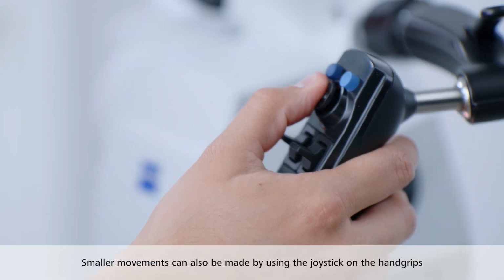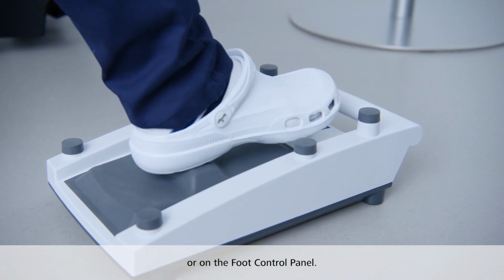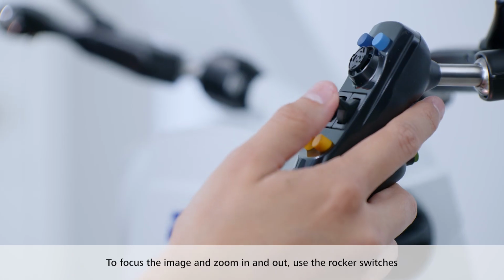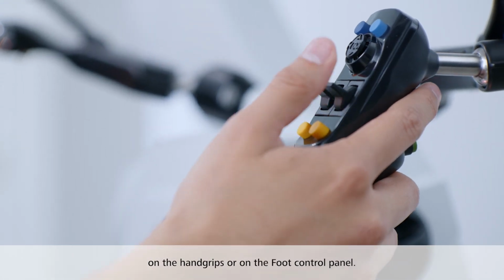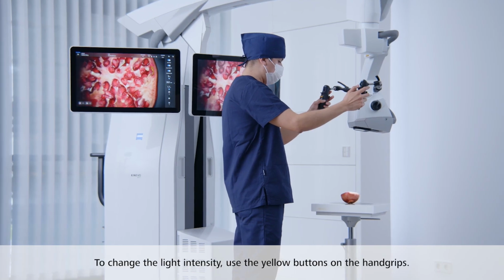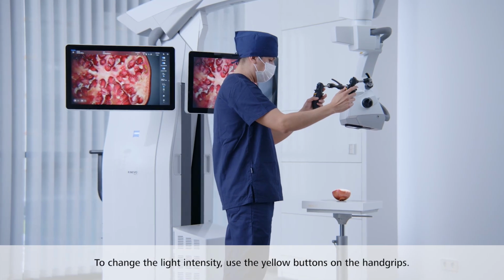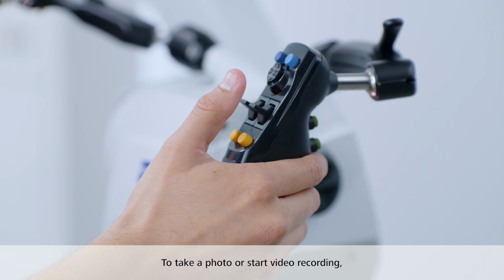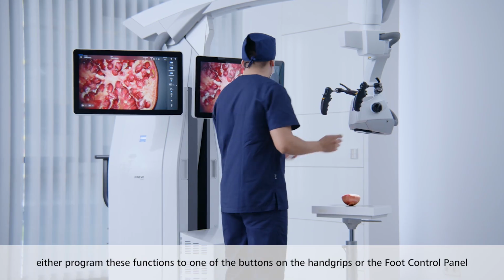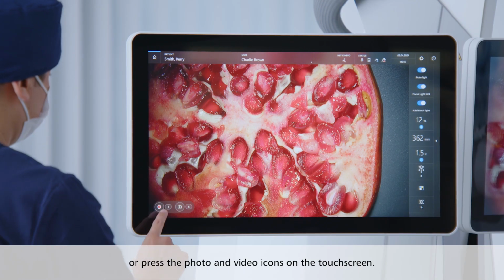Smaller movements can also be made by using the joystick on the hand grips or on the foot control panel. To focus the image and zoom in and out, use the rocker switches on the hand grips or on the foot control panel. To change the light intensity, use the yellow buttons on the hand grips. To take a photo or start video recording, either program these functions to one of the buttons on the hand grips or the foot control panel, or press the photo and video icons on the touch screen.